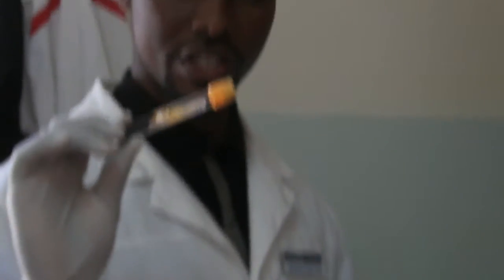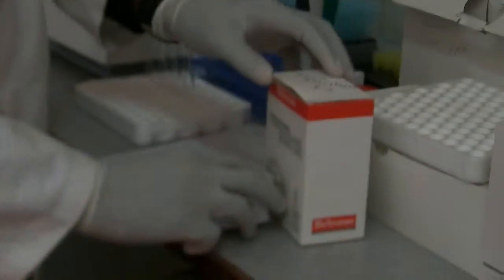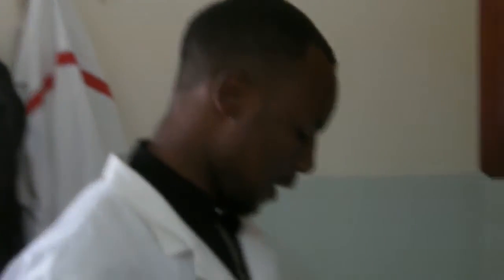You need patient serum. This is already centrifuged like you can see. And we have some reagents. This is total cholesterol. So I want to help you answer the question of how you can do total cholesterol for a semi-automated chemistry machine like this one, which is a Mindray BA88A.